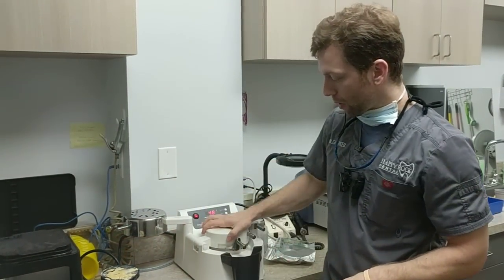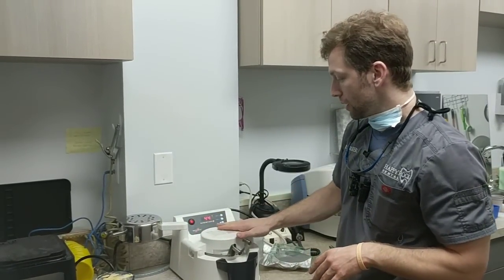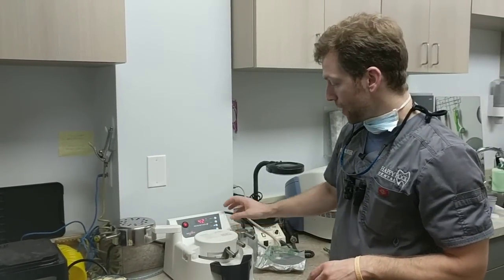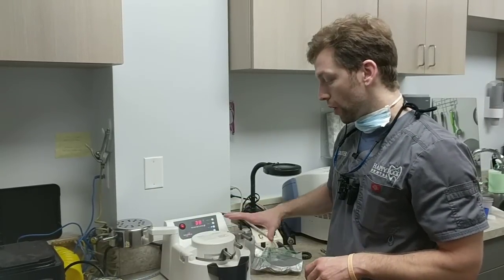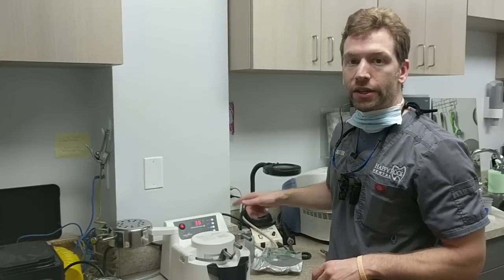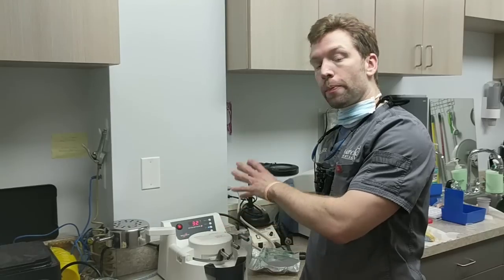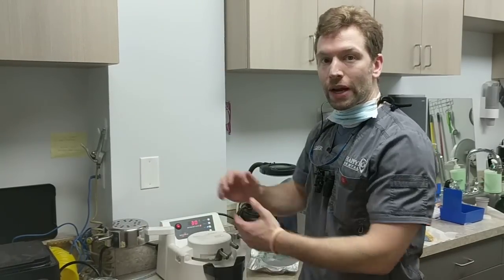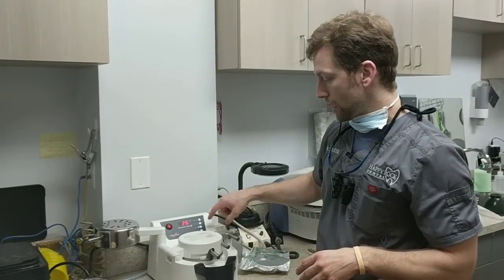It just applied all the pressure — you hear a little hiss, it's not too loud. When it's all done and this time ticks down, you press the air button. That will release the pressure before you undo it. You actually can't turn this until you hit that button, because if you were able to turn it the pressure would be so hard it would swing that way — pretty destructive. So it won't allow you to release it until you hit the air button.